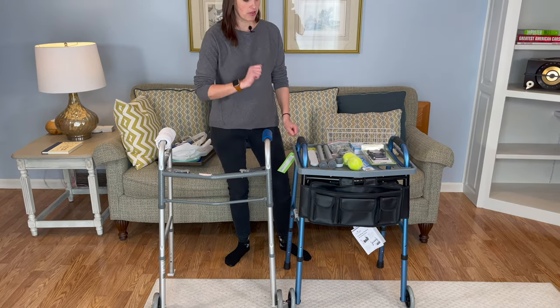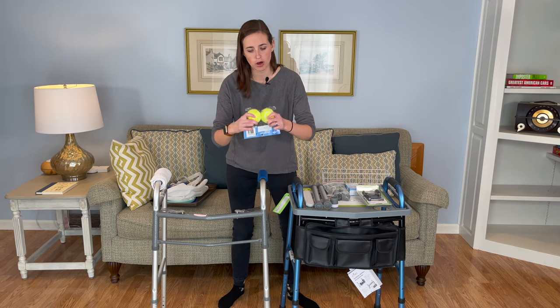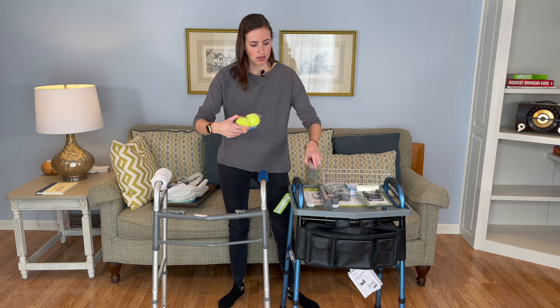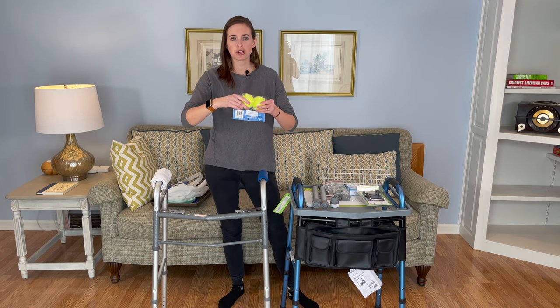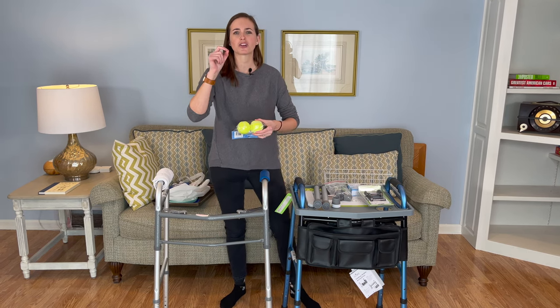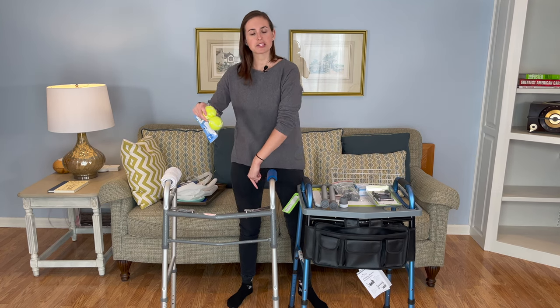An alternative is the classic tennis balls. I love that you can buy these pre-slit. They just go over top of the cap on the walker leg and will do the same thing in providing a little bit extra smoothness of movement. These work pretty well, though I think the skis are a little bit easier to manage, as the fuzz on the tennis balls tends to get caught up on very tight woven nap carpets. Tennis balls work great on hardwood floors or beautiful tile, but the skis are better on carpet.